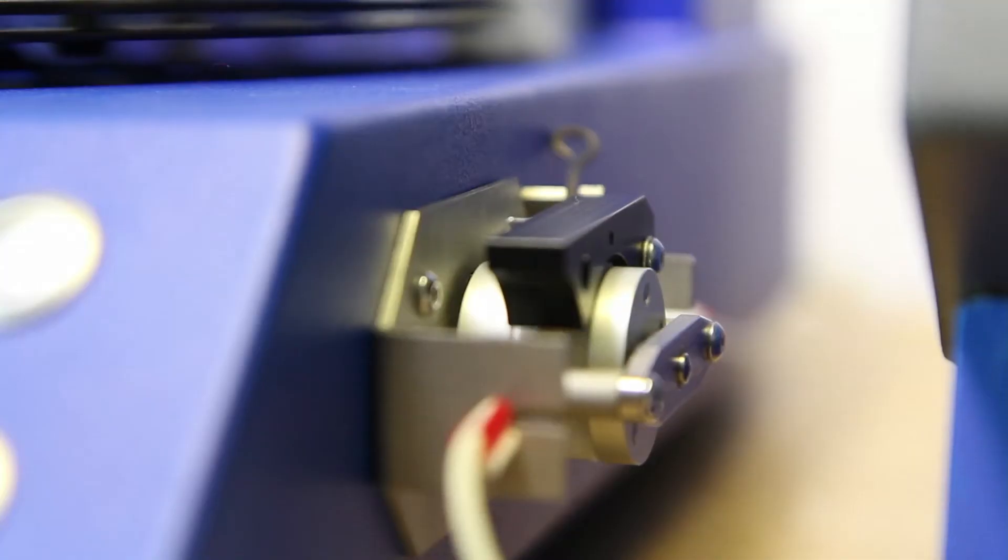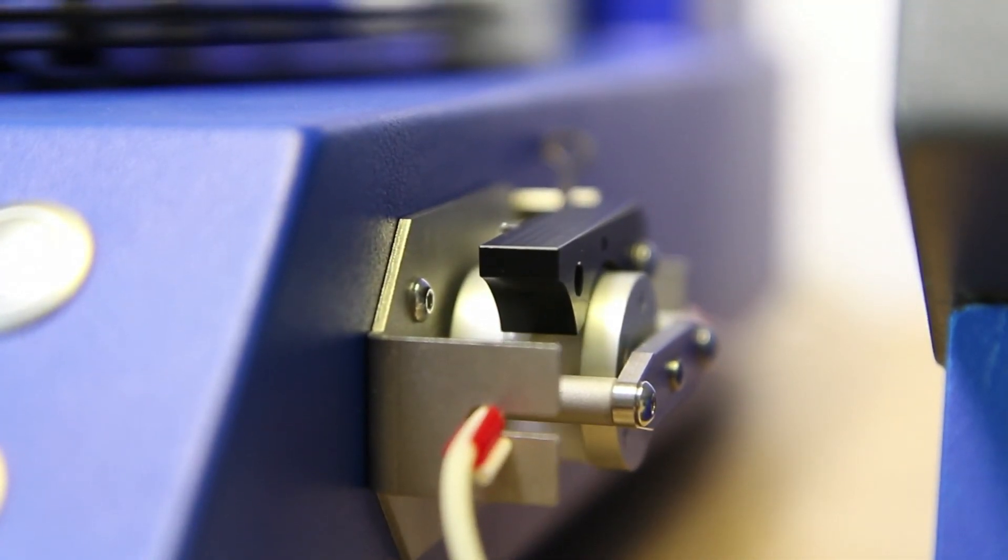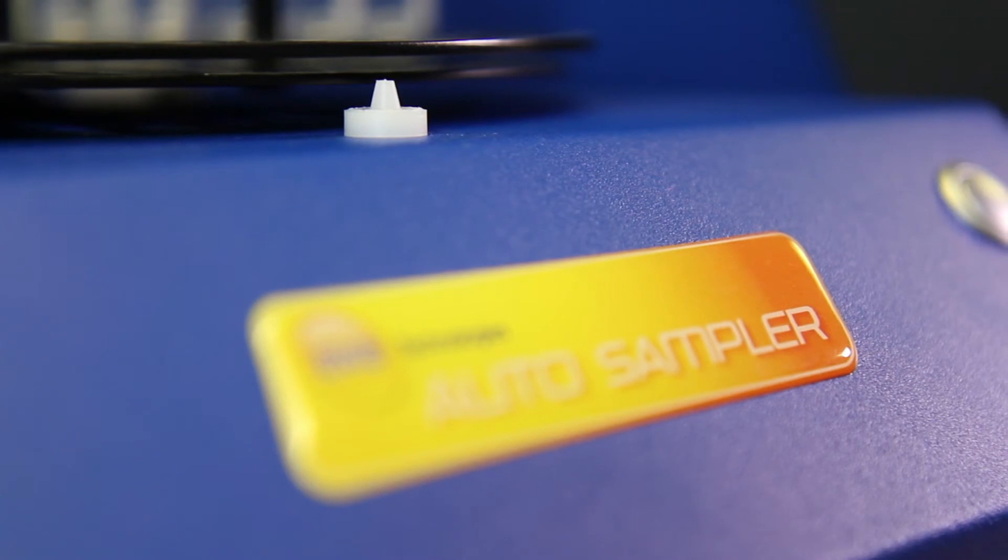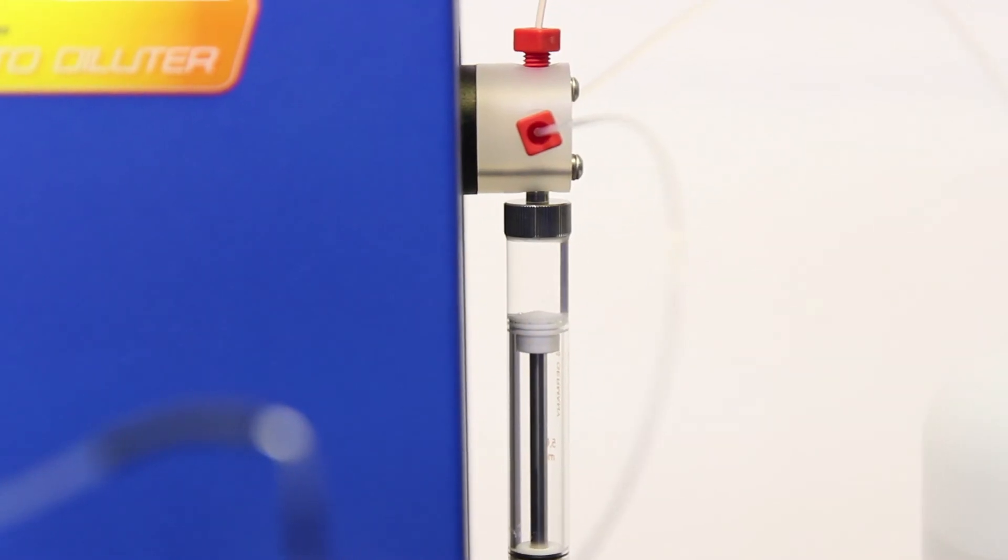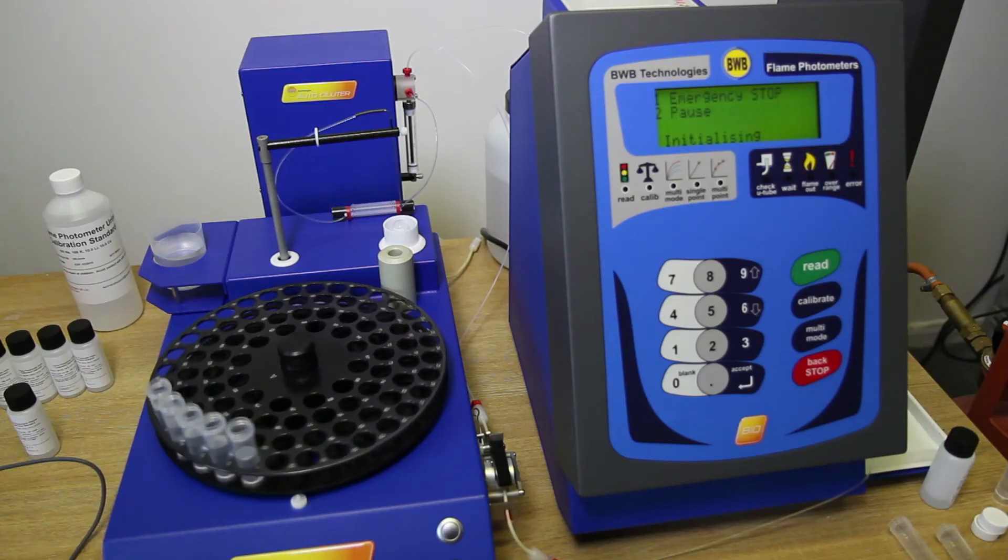If a printer is available and has been activated, the reading for each point will be printed as completed. Calibration without AFHS is possible, but each point would need to be diluted and aspirated manually, and this would take a considerable amount of time.